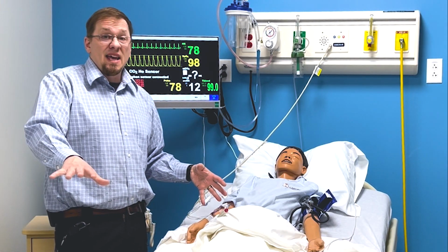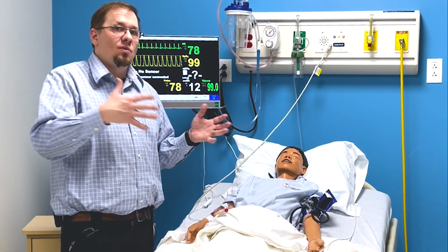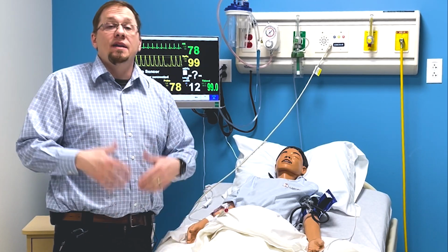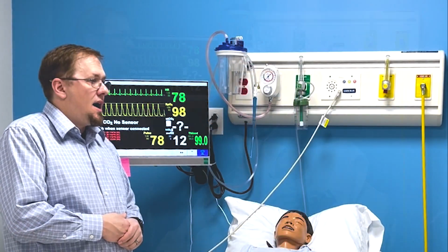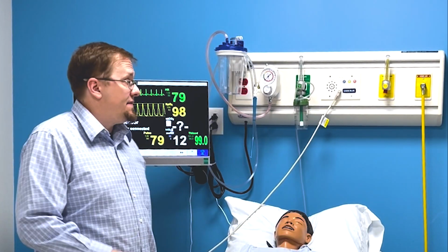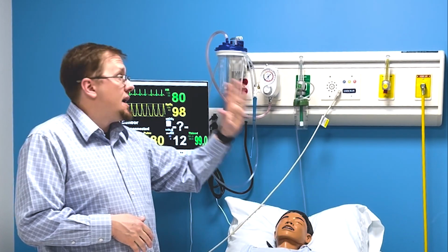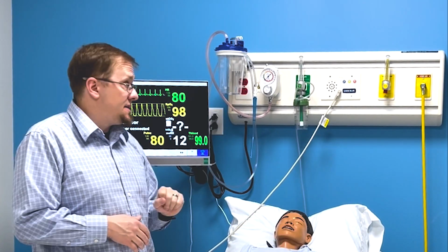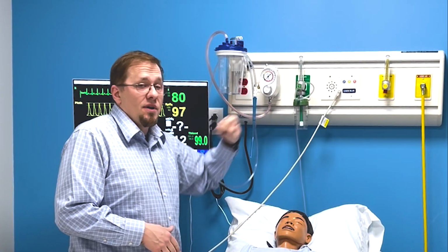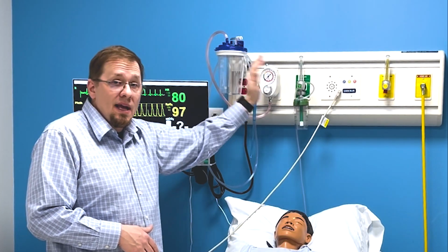And then I'll usually say, you may not need that today, but because you'll need to know this when you're working in the field, I want you to know that there is a control on here to drop the head of the bed for CPR purposes. After that, I usually go over the head wall. A lot of my sim rooms have this style horizon head wall, and I make sure they know that the compressor's on, everything's going to work like it is in clinical practice, and I expect you to do it here. So if you're going to put an oxygen device on this patient, I expect you to connect it, dial in the dose, and actually do it.